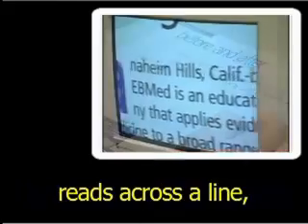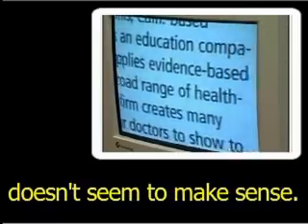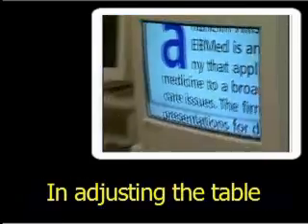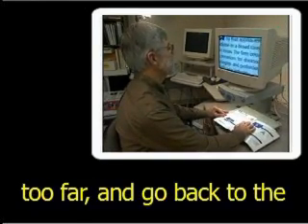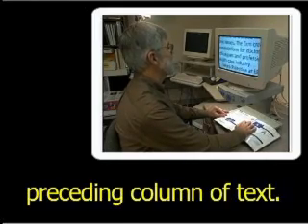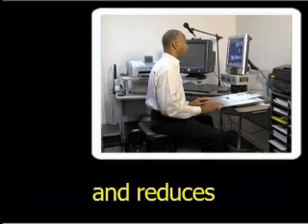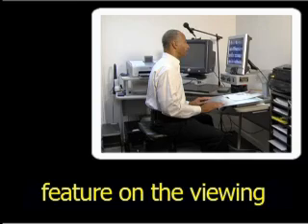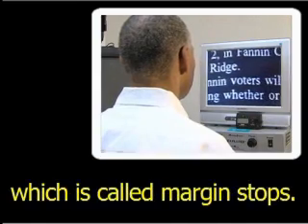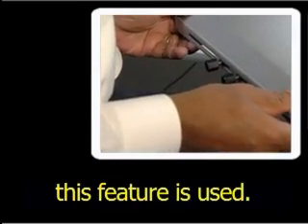As the user reads across a line, he or she may inadvertently move into the next column, and suddenly the line being read doesn't seem to make sense. In adjusting the table to locate the beginning of the next line, they may move it too far and go back to the preceding column of text. This extra movement at the beginning and end of lines slows down the reader and reduces reading efficiency. Better quality video magnifiers provide a feature on the viewing table called margin stops to solve this problem.